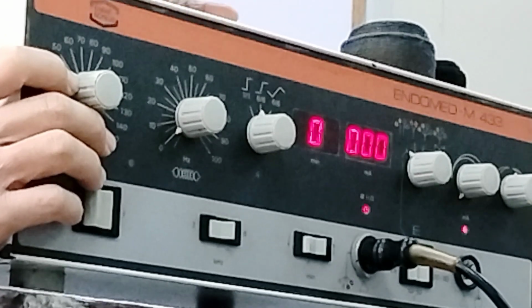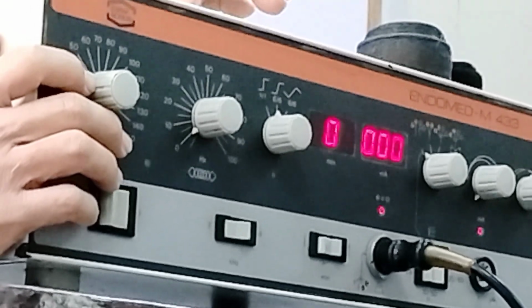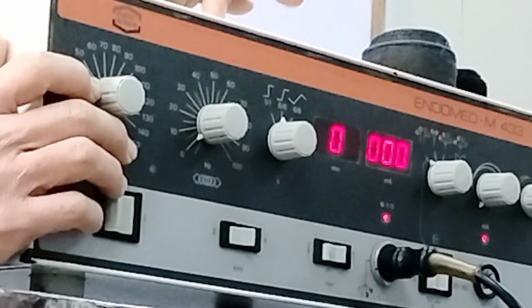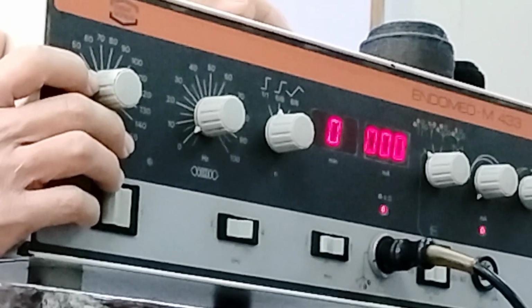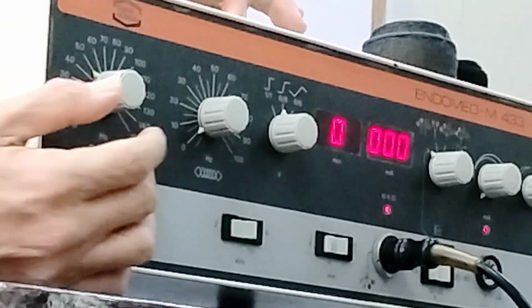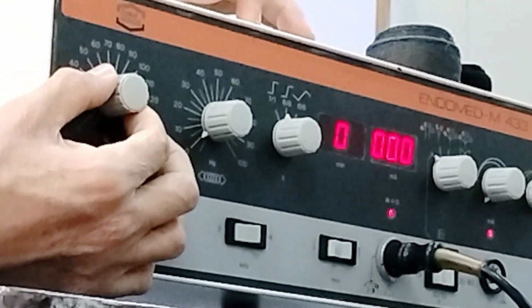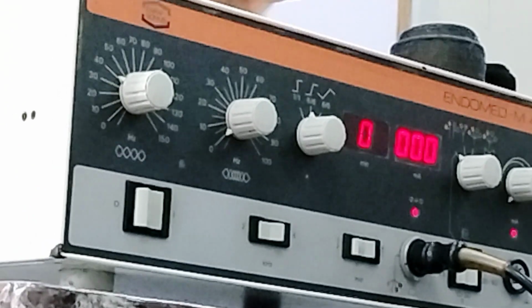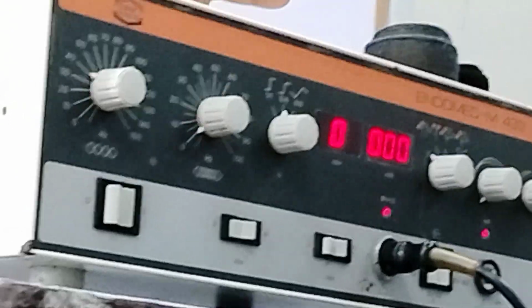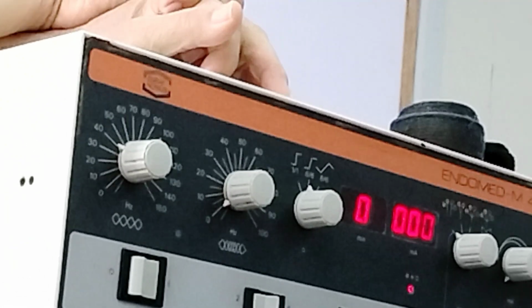So here, with regards to adjusting this frequency, take note that the frequency can be constant, wherein it would remain the same value. Or the frequency can vary, change from time to time. If it is constant, it's fixed, so you can't adjust it. So if you encounter the phrase 1 to 10 hertz constant, you just choose values between 1 to 10.